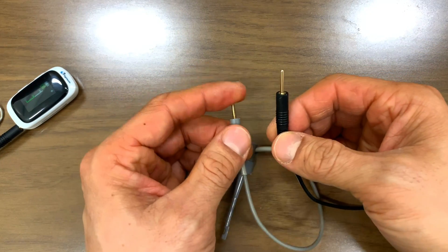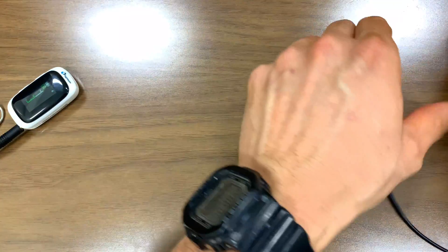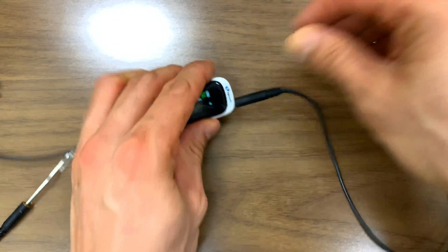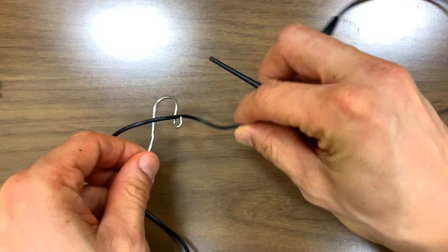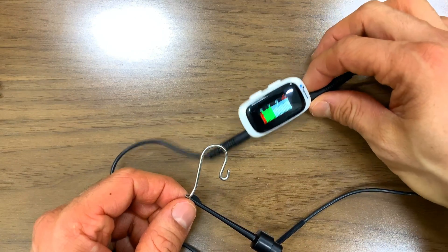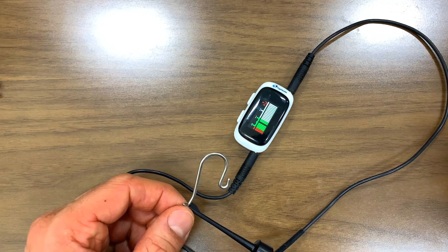In the moment when you're struggling and you don't have one of those at your fingertips, just grab another file clip — a fresh one — because that might solve your problem. Click it in there and check for connectivity first. Before you even have the patient seated, check to make sure your apex locator is working. It should read all the way to apex. You can do this with any apex locator, not just the Air Apex. Then off you go — you've got confidence.